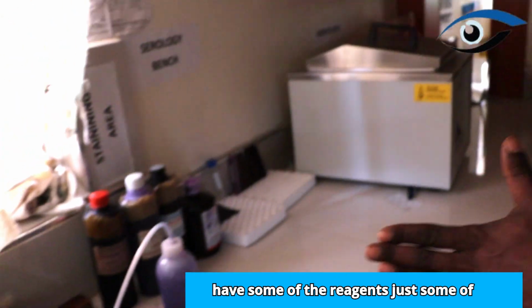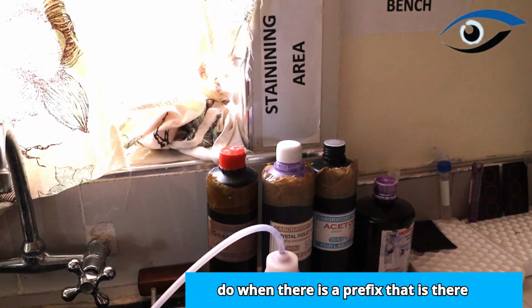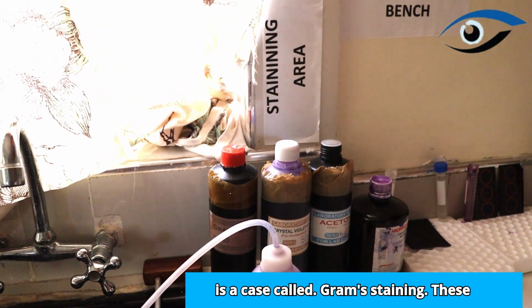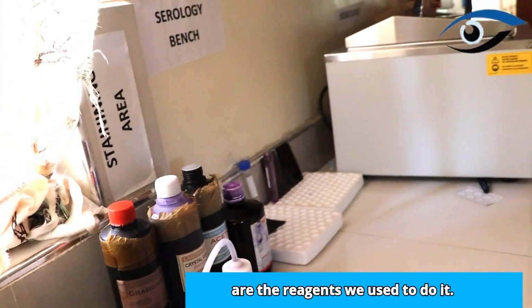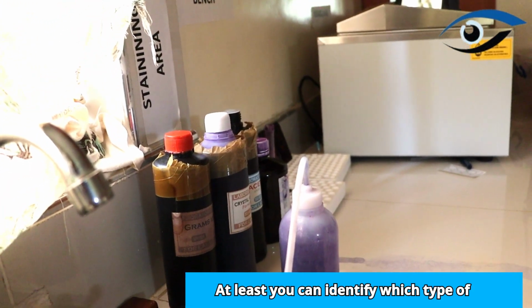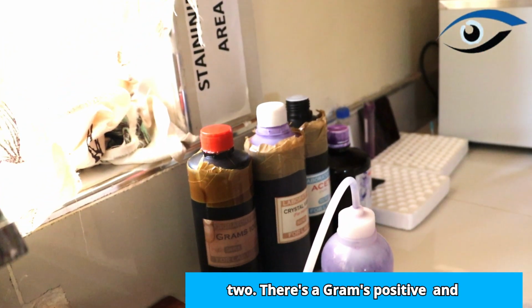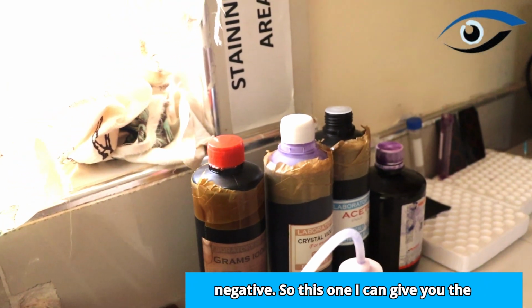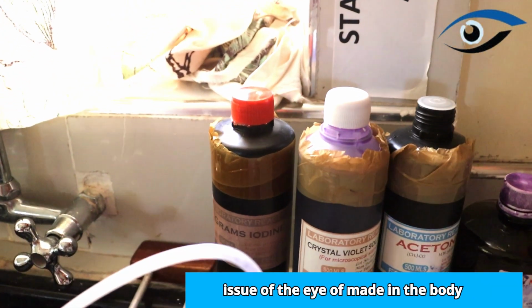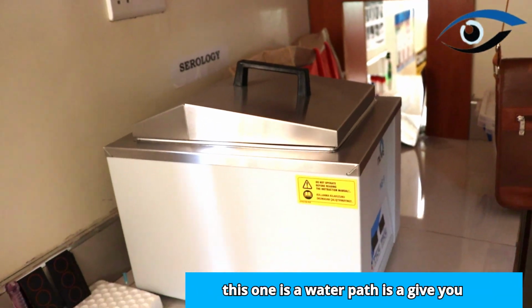And here we have some of the reagents, just the way I said. There is a test called gram staining, and these are the reagents used to do it. You can identify which type of bacteria, because there's gram-positive and gram-negative. So this can give you a hint which bacteria are affecting the eye or maybe the body systems.